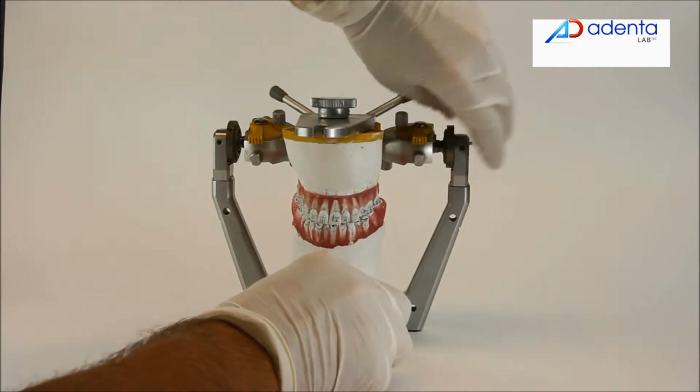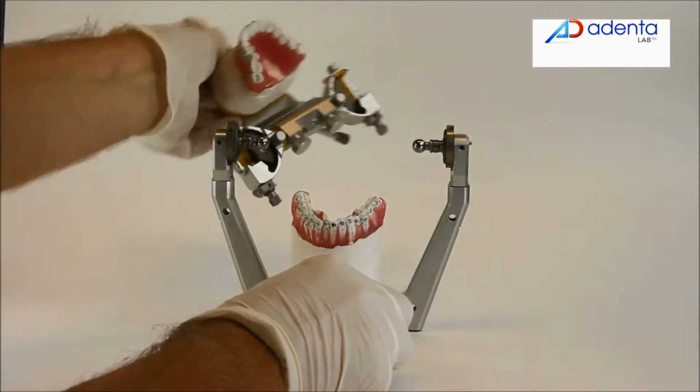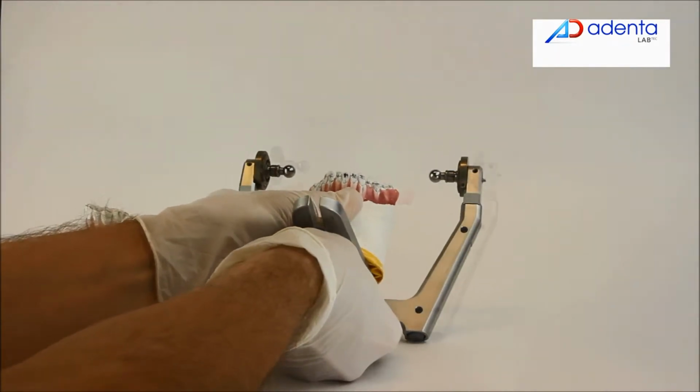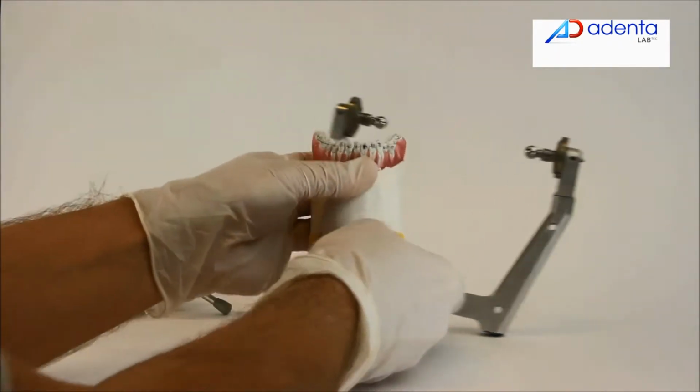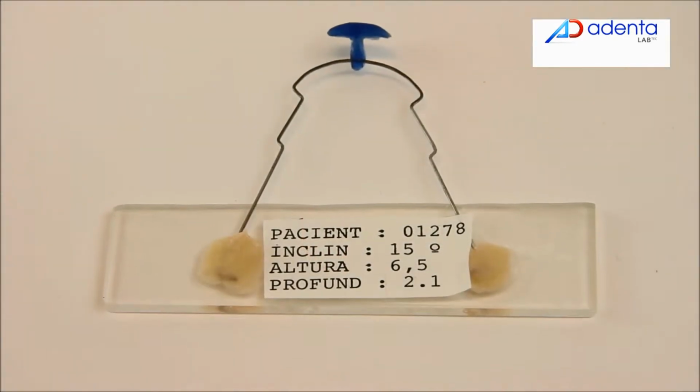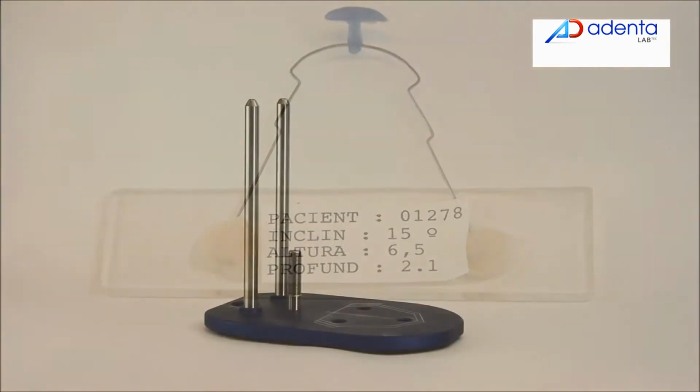The occlusal plane reference allows the use of setup models mounted with a plate of any articulator, so you can put them back in the articulator without the intermediate steps after the correction has been carried out. It also allows the brackets positioning too.